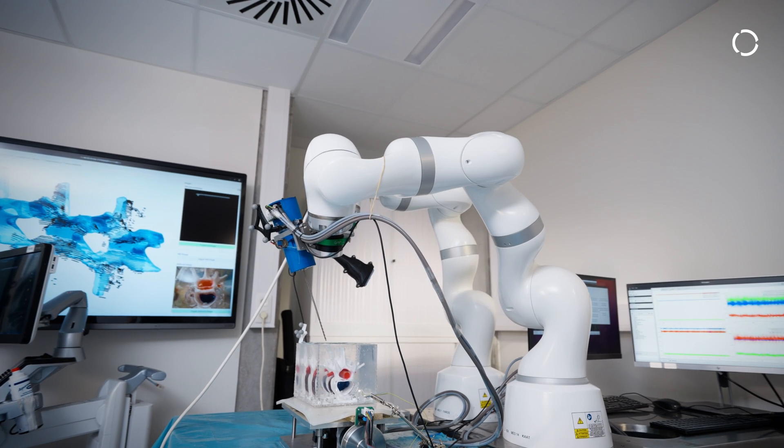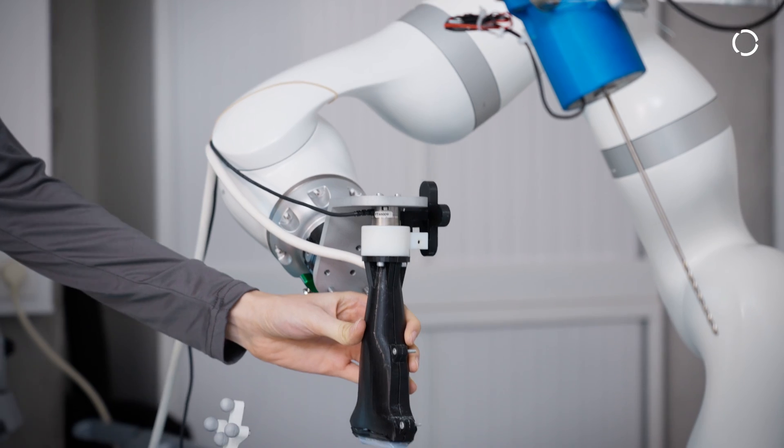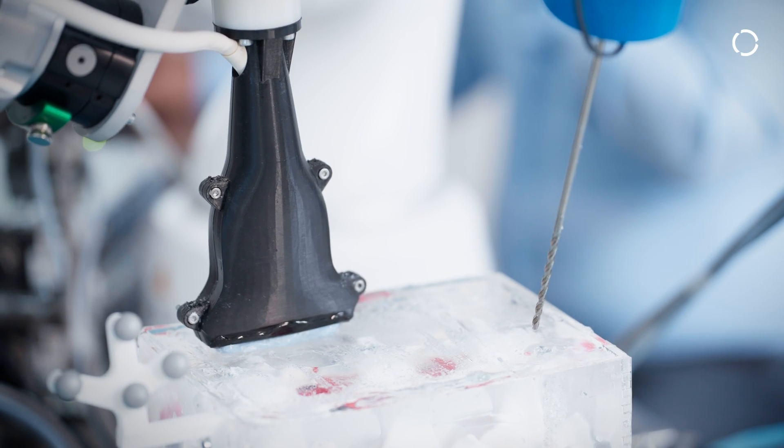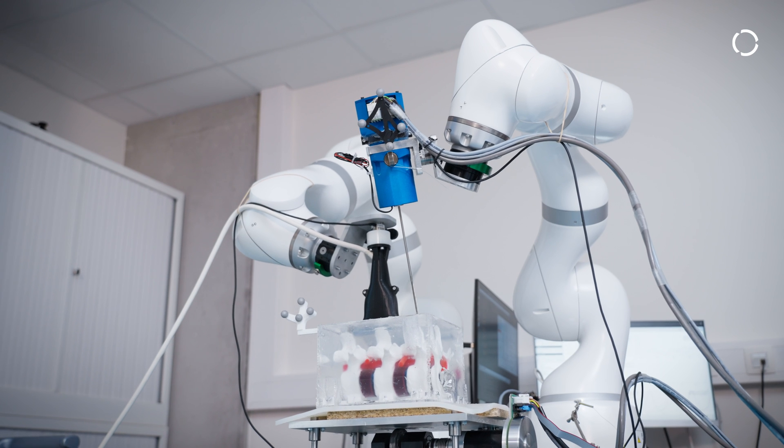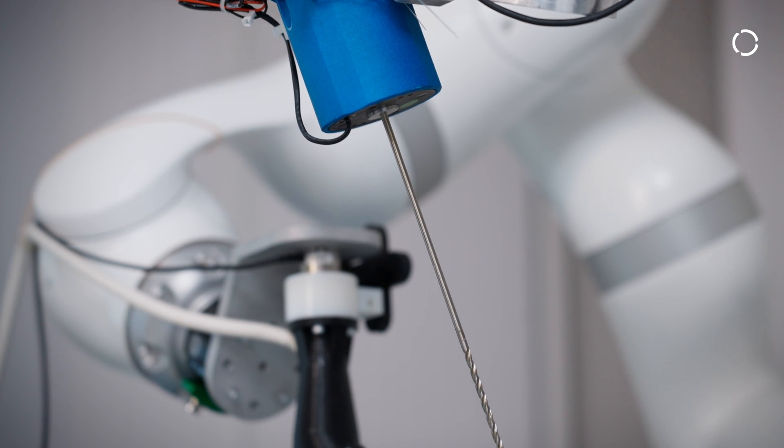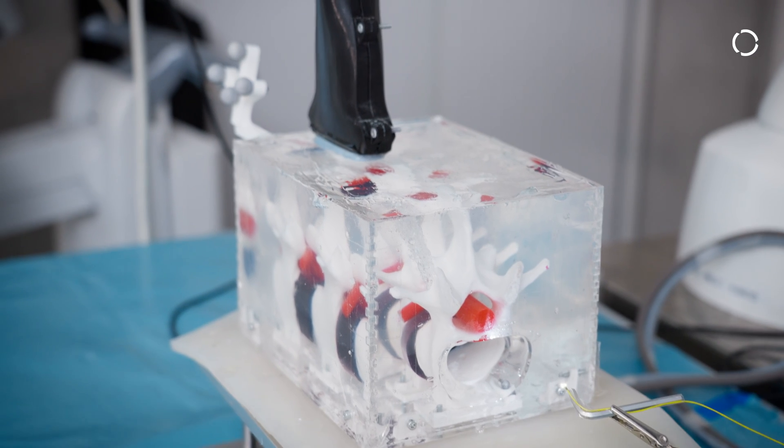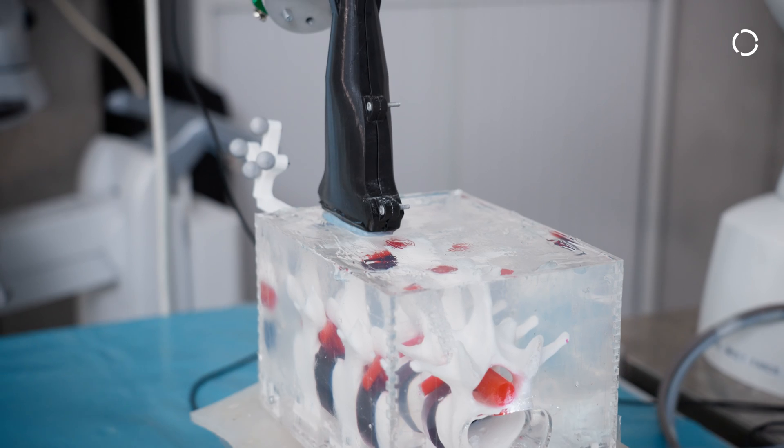The main three benefits of this system are the ability of generating an ultrasound image scan in real time that is highly precise. Secondly, is the ability to move in a coordinated system, so we have a two arm system that is able to operate together on the patient. And thirdly, the system is actually able to cope with the motion of the patient with their physiological motions or with the interaction with the robot itself.